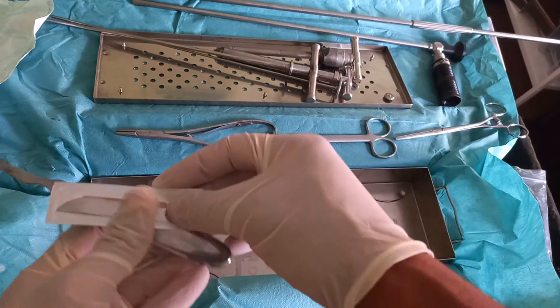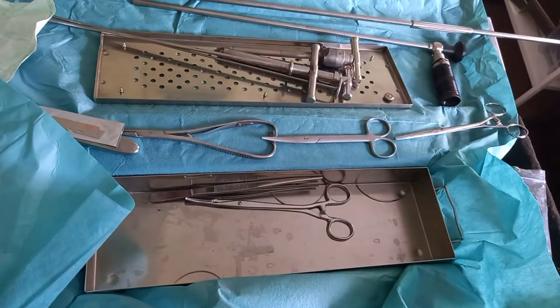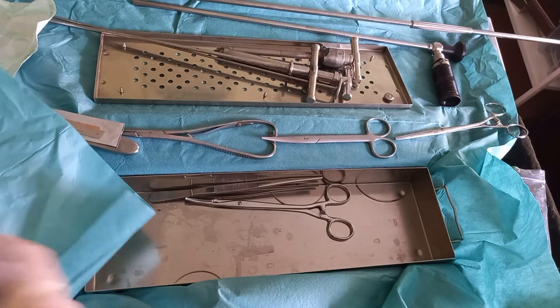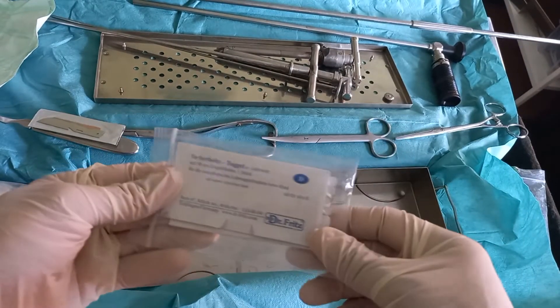And finally comes the safety toggle, which consists of a rod of metal with no sharp endings, connected in its middle with an unabsorbable suture material. This toggle will be used in fixation of the abomasum from the inside.